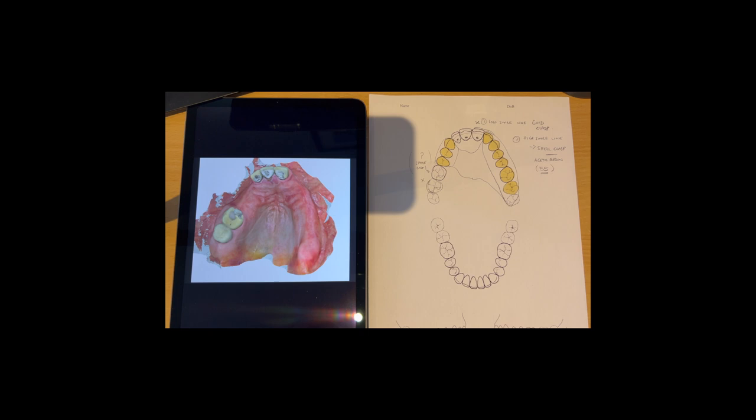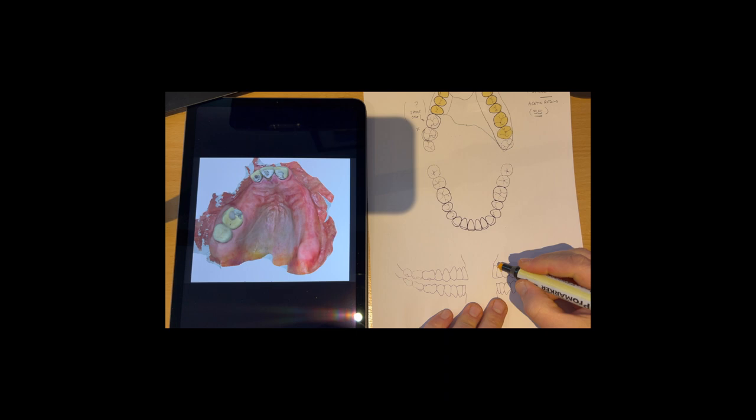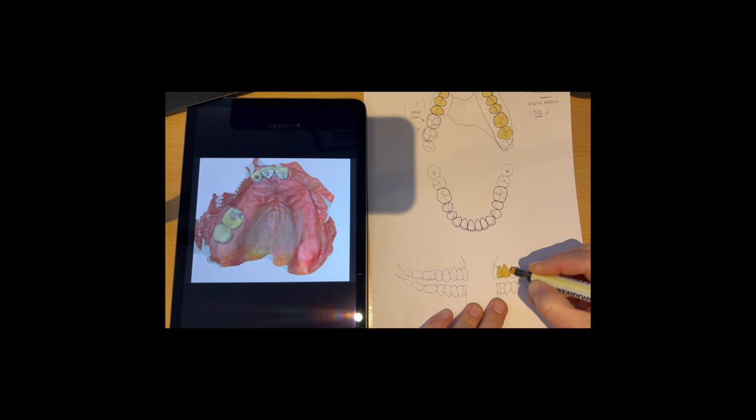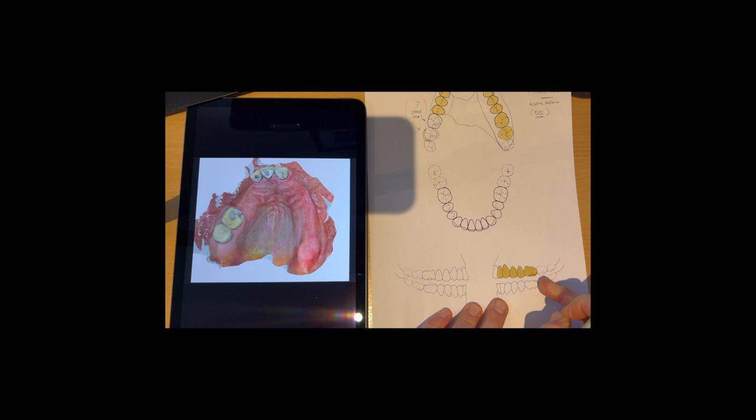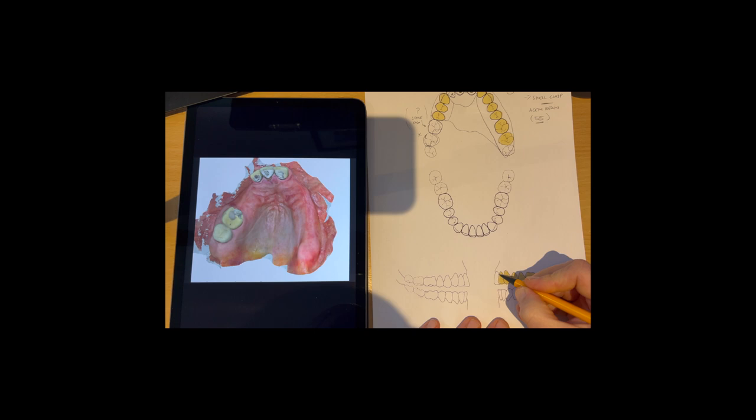So I'm just going to do this little section here, the side views now, so you can get a good idea of what the thing's going to look like from the side too. Just like I mentioned there, if the patient's got a lower tooth there, then I would put one on the denture. If not, I wouldn't bother. Sometimes it's really tight for space here too, maybe with an overrupted tooth, might put a little metal stop there on the denture itself. So it's very much dependent upon what's going on in the patient's mouth.